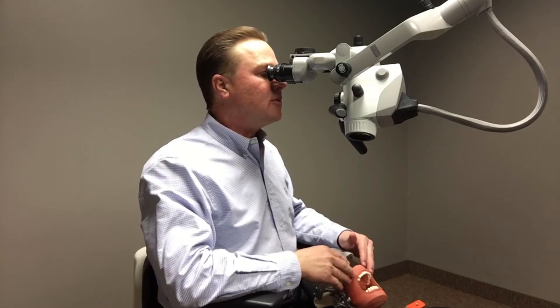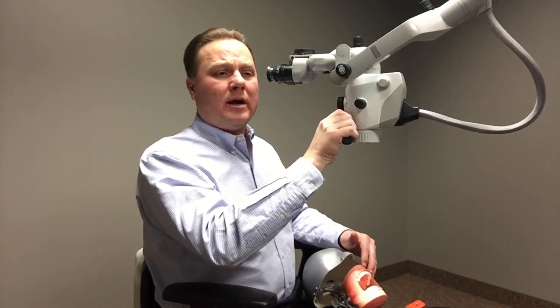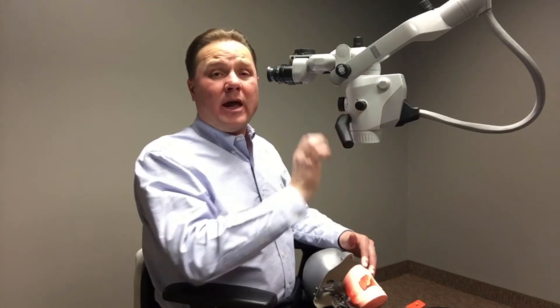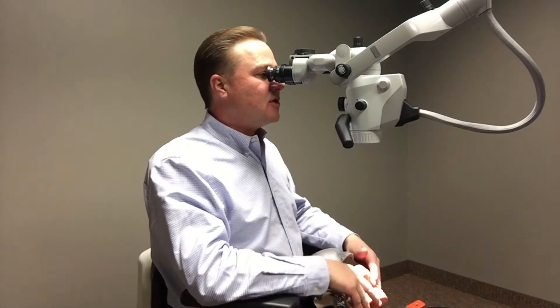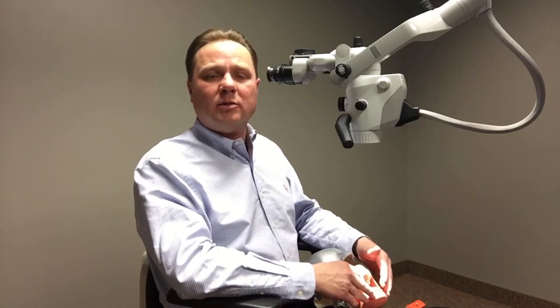As I look through the microscope binoculars, it takes the operator and keeps them in that good position — not having to contort their body and start to lean side to side as they're looking through the binoculars.